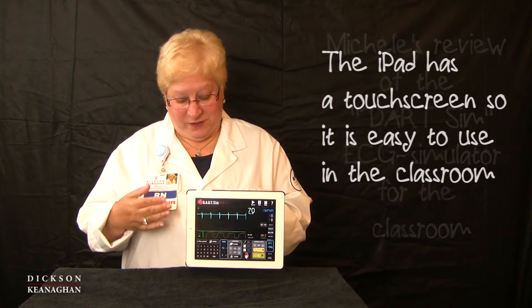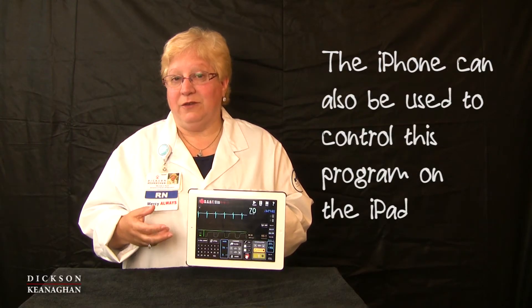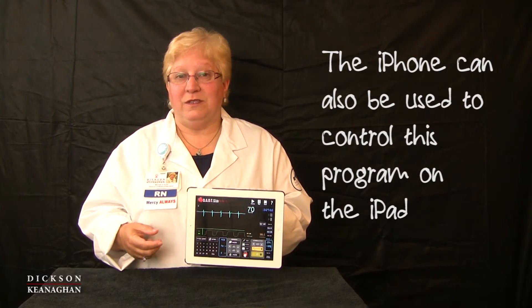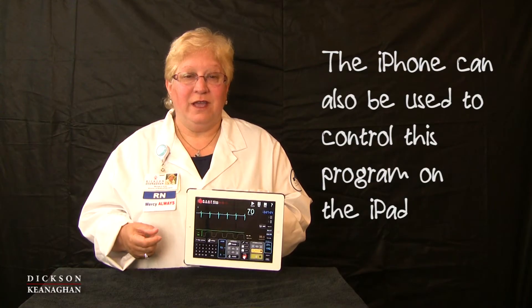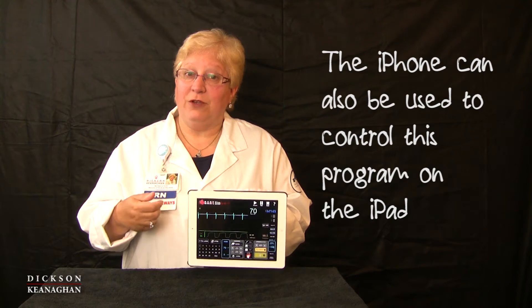It's only a few dollars when you search for your apps. It's called Dart Sim — D-A-R-T-S-I-M — a great app that you could use on your iPad or even download to your iPhone. They even sell a companion app that is a remote control, so you could change rhythms and even the vital signs right from your phone as your class is watching your demonstration.